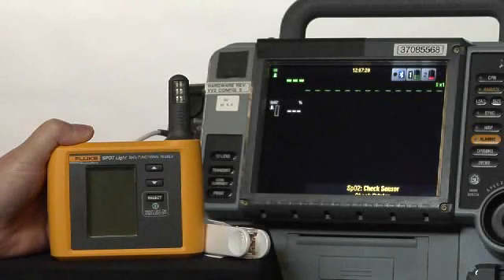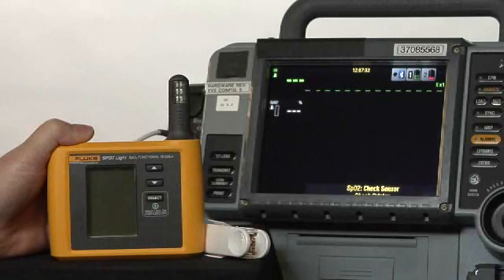Introducing the ProSim Spotlight SpO2 functional tester, the latest member of the ProSim family.